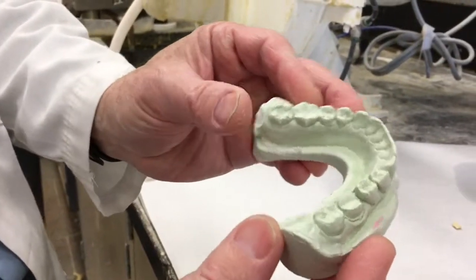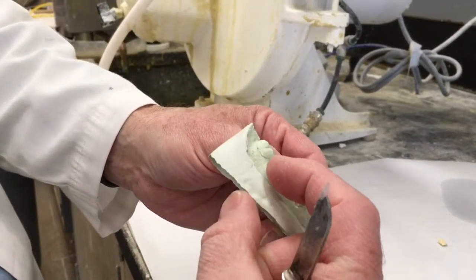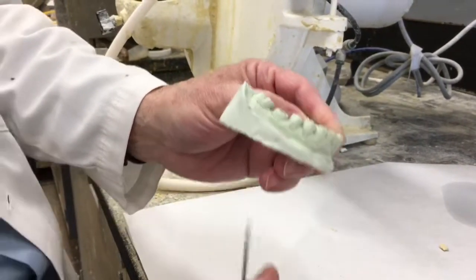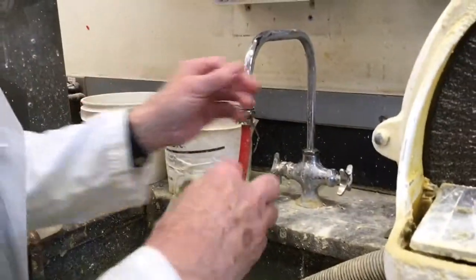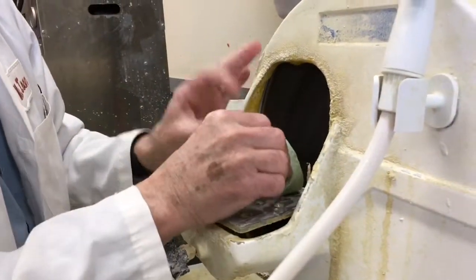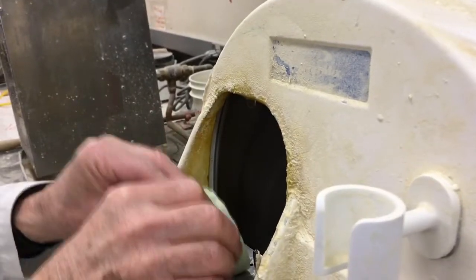Now I need to trim it. I'm going to trim around it and flatten out the base a little bit. I want the base to be between 10 and 12 millimeters, measured from the margin to the base of the cast. Before I trim it with a wet trimmer, I want to wet the cast so that the model trimmer sludge doesn't go into the sulcus and stick in there. Set it on the table — don't try to grind it up in the air.